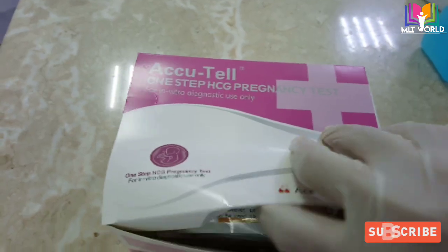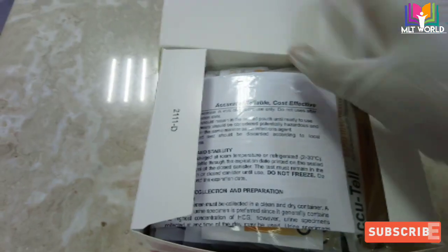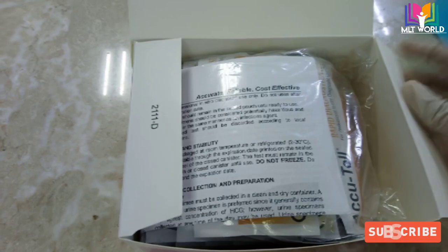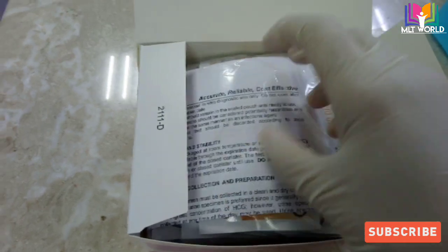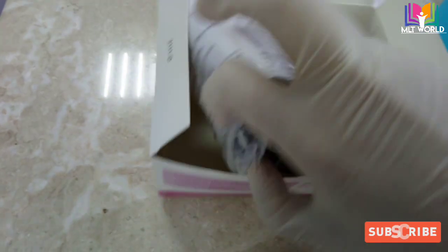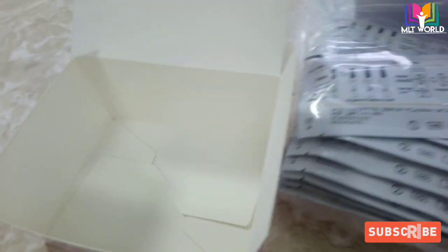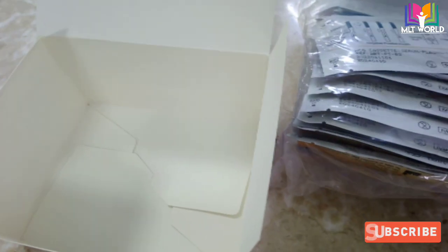Welcome back. Today in this video I will show you the difference between the pregnancy rapid test card and the HCG hormone test, and how we are performing these tests in the lab.